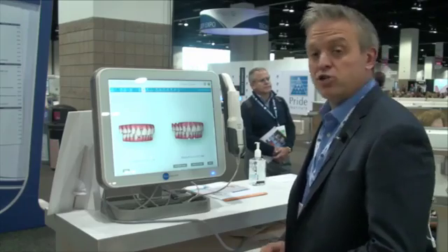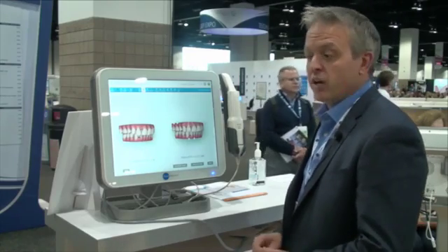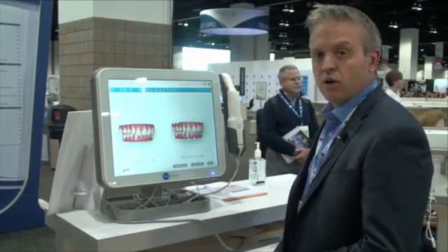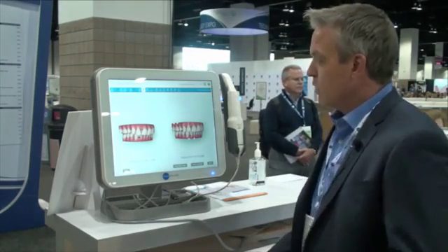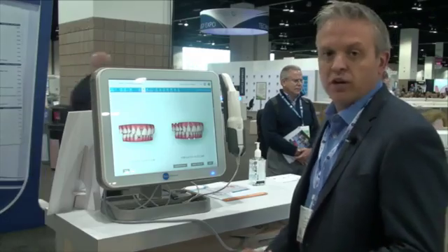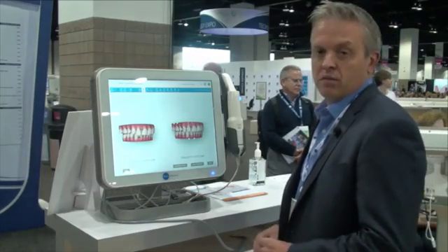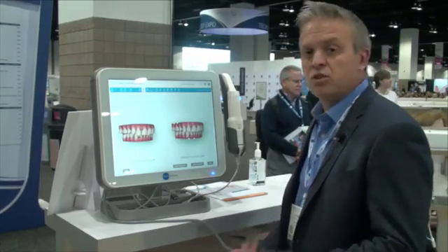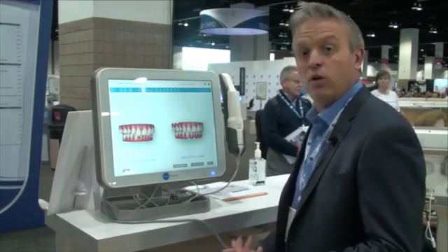Hey there, this is Dr. Brett Jacobson coming at you again from the ADA meeting in Denver, Colorado. What I'd like to show you here is the Invisalign Outcome Simulator. Now this is exclusive to the iTero Element.